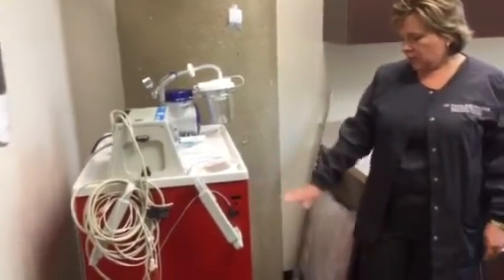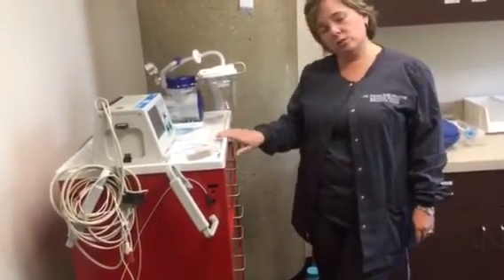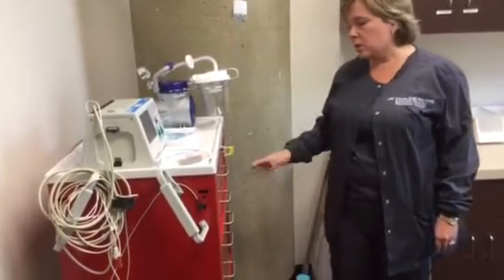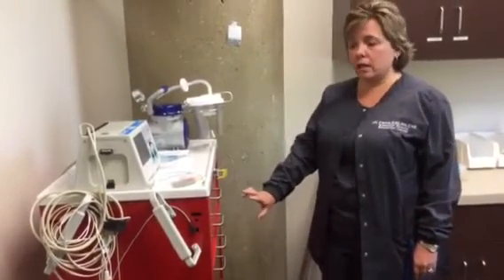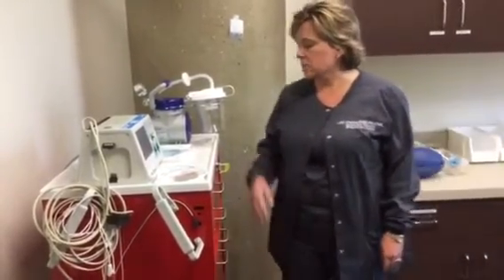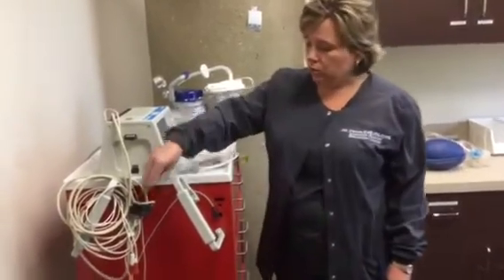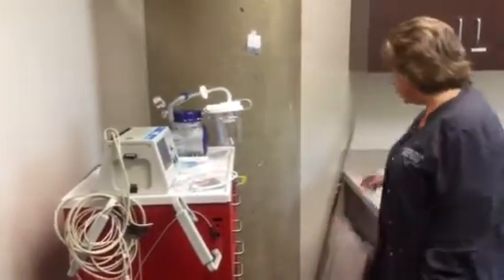On the front of the cart, you have several drawers. You have your lock code on here. This cart is to remain locked, and so you will have to break this code, break the seal as part of the process of getting into the cart. And then you will find your code medications as well as syringes and needles and IV tubing and IV fluids in the cart, as you would for a regular cardiac arrest. I will note that these are your pads that you would normally use on a patient in the hospital. We do not use these, as your wireless hands-free kit replaces those for the mannequin defibrillation only.